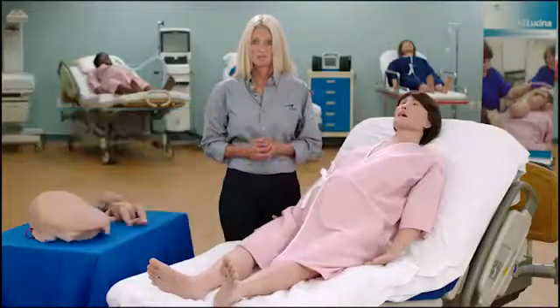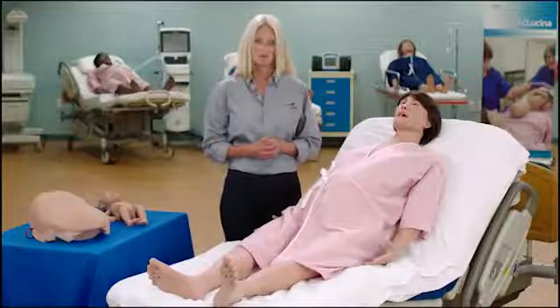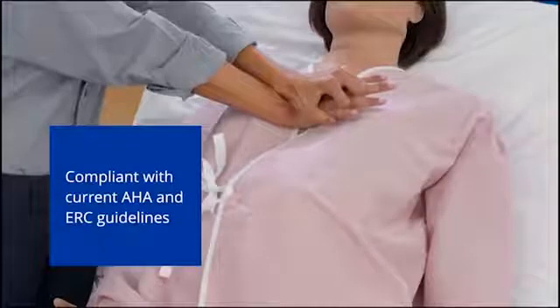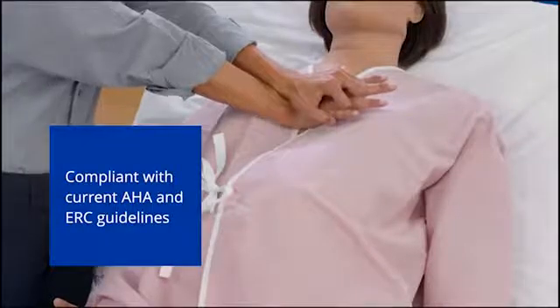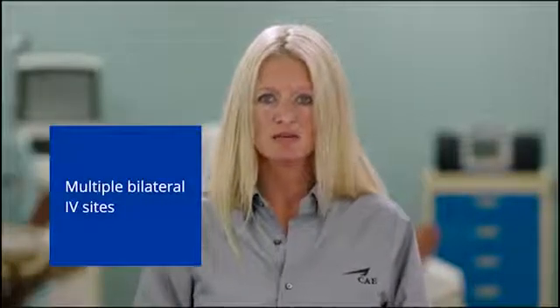Lucina can be placed on real cardiac monitors for rhythm analysis and electrical therapy. She supports chest compressions and is compliant with the current AHA and ERC guidelines, providing real-time CPR metrics. Lucina has access and infusion through multiple bilateral IV sites.